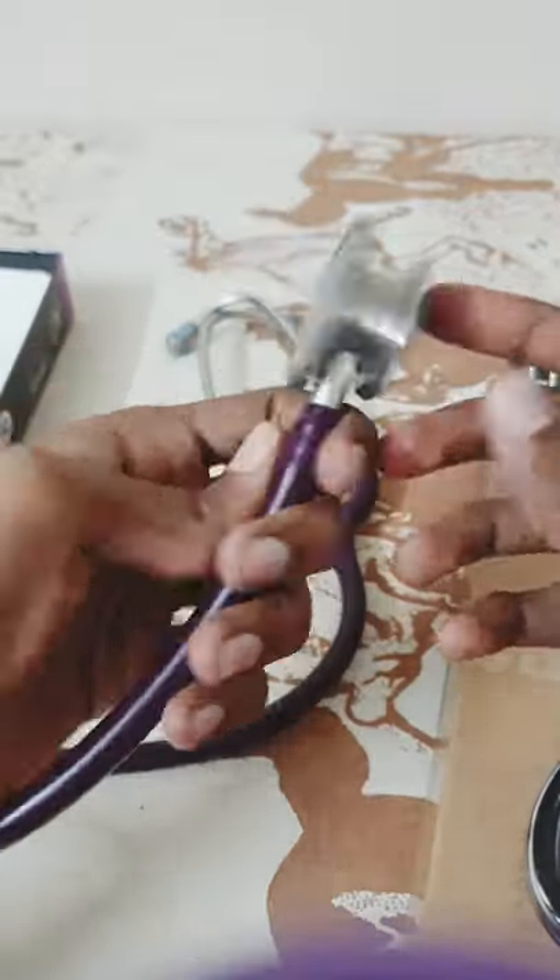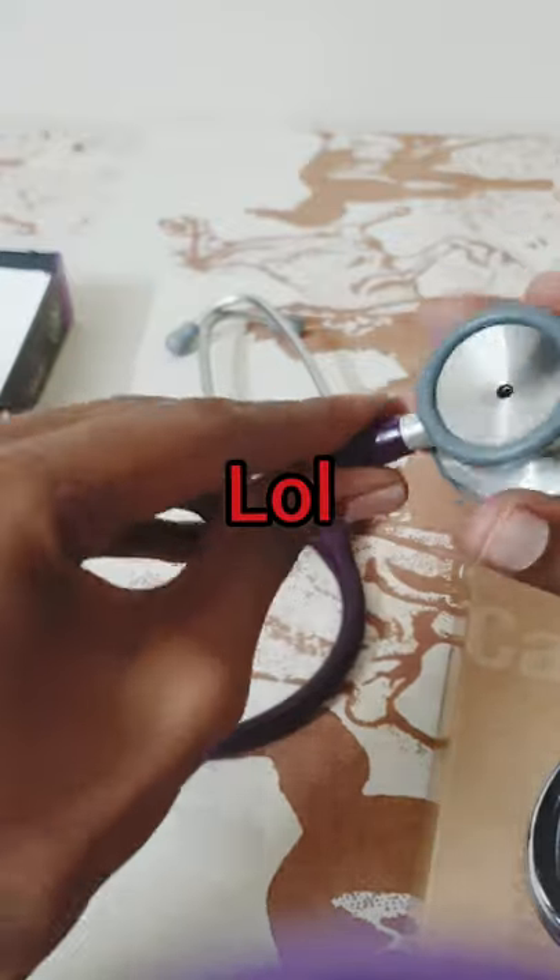Round. That's it. As simple as that. Open it this way and use it.